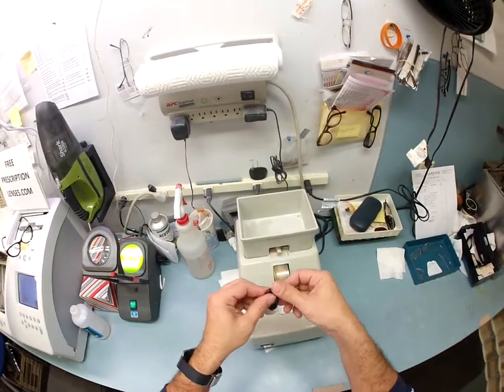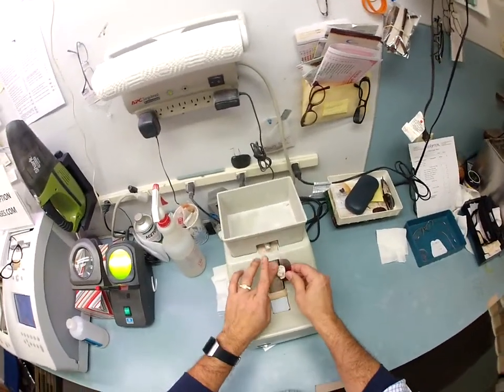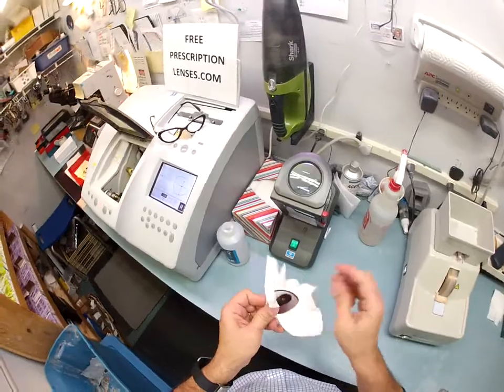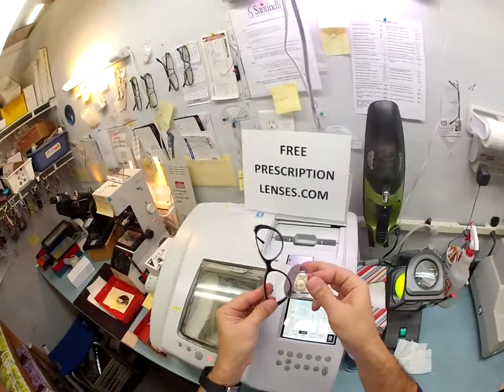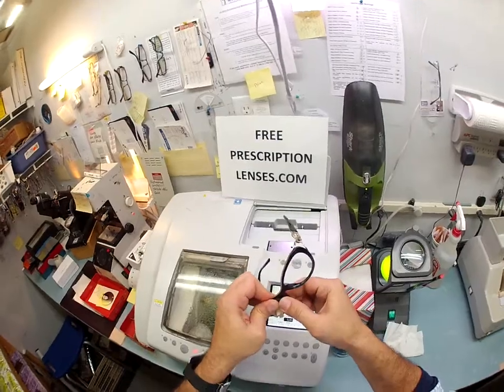There are still a little bit of rough edges on the lens, so I'm going to the hand stone to smooth off any rough edges. Let me dry the lens off so it's not slippery — it's embarrassing when I drop a lens on live TV. I start at the outside corner and try to tuck it in to see if it'll fit. It does not — I'm going to need to cut some more off. I'll take about a tenth of a millimeter off.